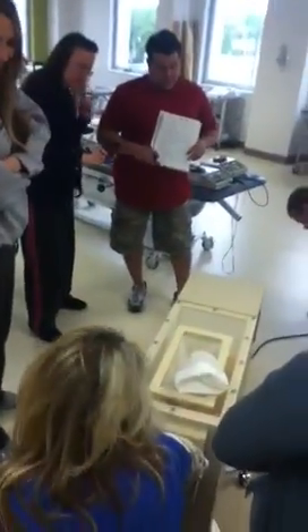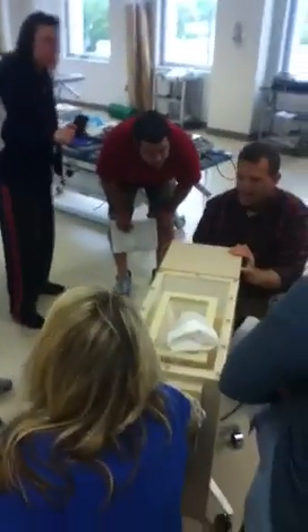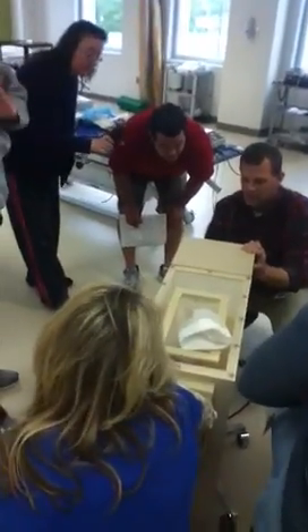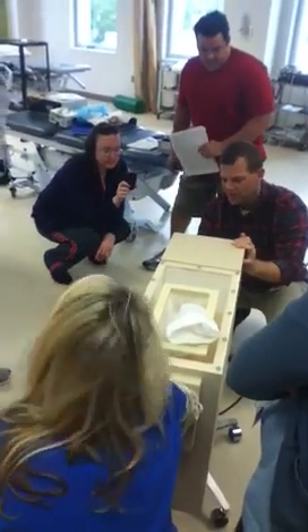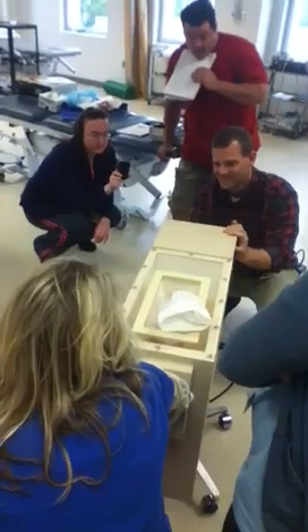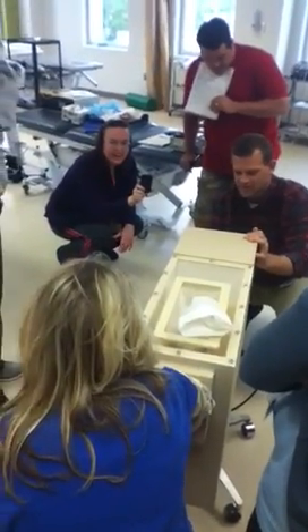Now what's the problem with it? It's warm corn husks. On the back I can set temperature and air speed. I can try to preheat it — I preheated it, but is it warm? It's a little warm, yeah. It's 115 degrees right now. Let's see if we can get it to run.